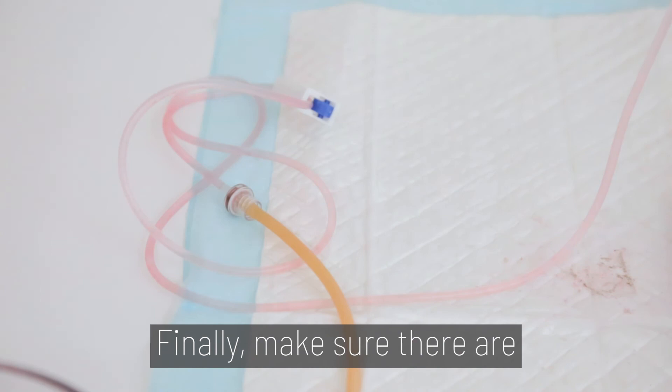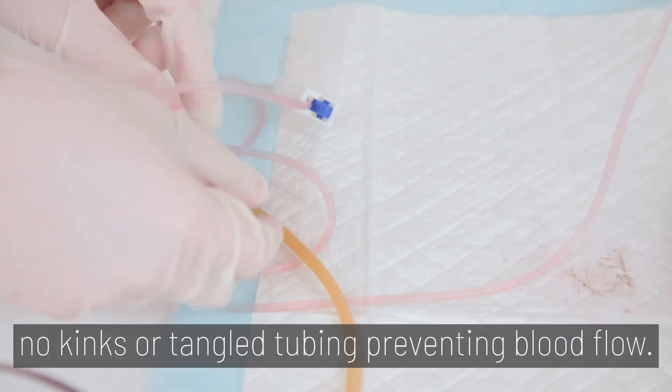Tip 8. Finally, make sure there are no kinks or tangled tubing preventing the blood flow.